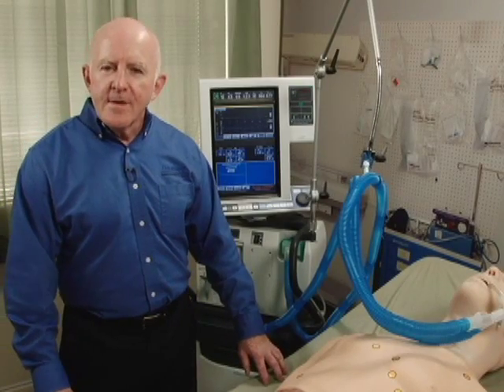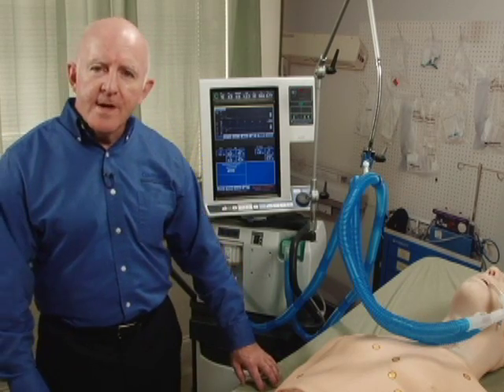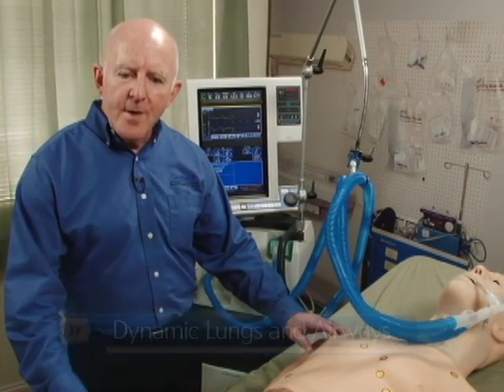My name is Rod McDonald with Gaumard Scientific. I've worked in adult critical care and anesthesia ventilation for 28 years. I'm here today to show you the dynamic lung model on the 3201.